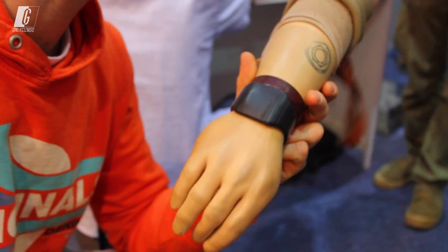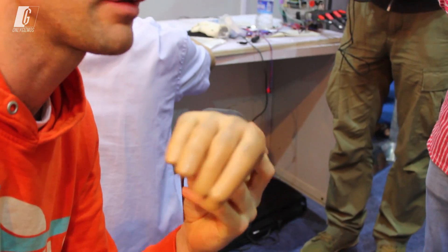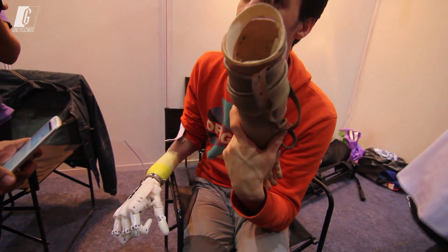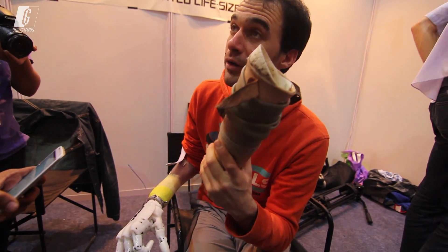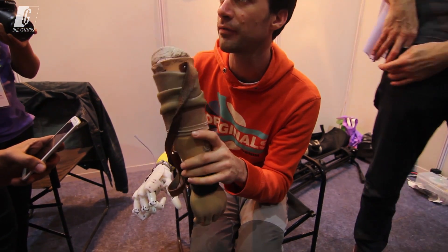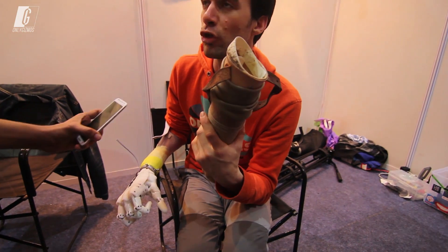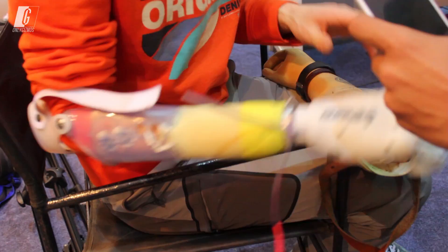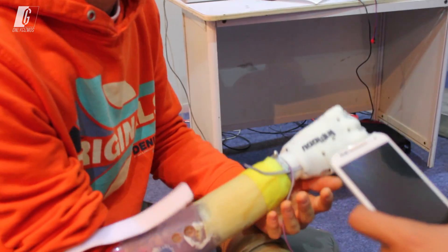I've been using this one for the last 12 years — yes, it's from my accident. This is a commercial model, and it's very good, but it's very expensive. It's $10,000 to $15,000, and the new model costs $50,000. So this one costs $500.